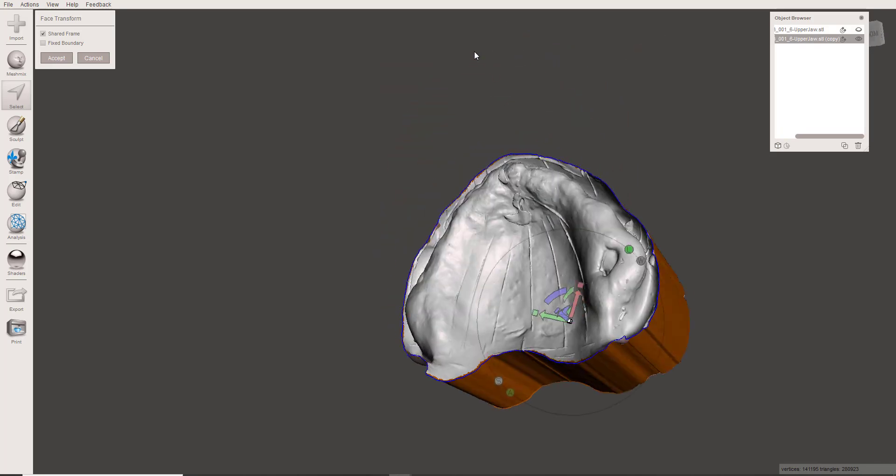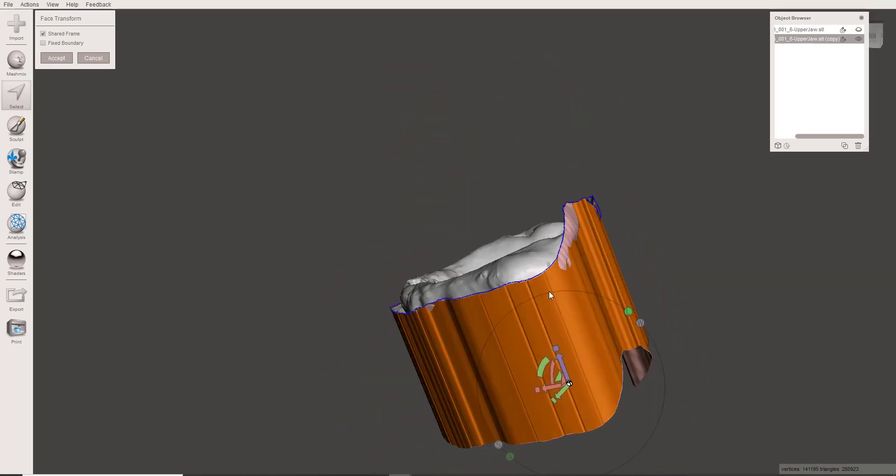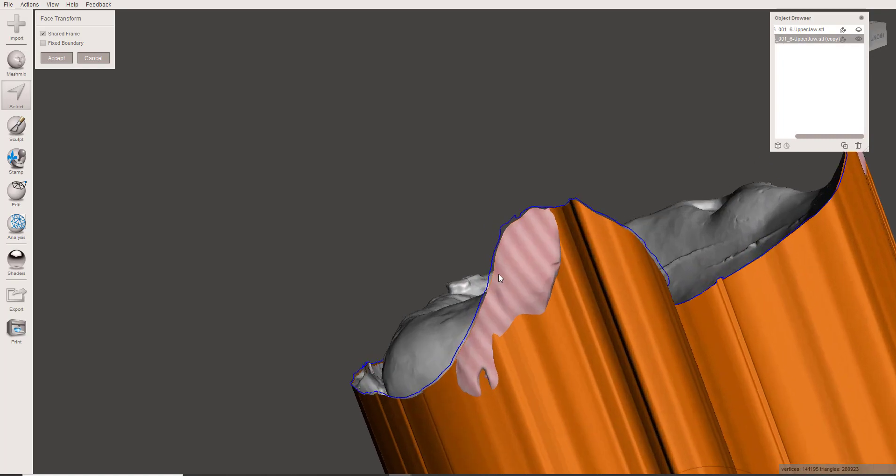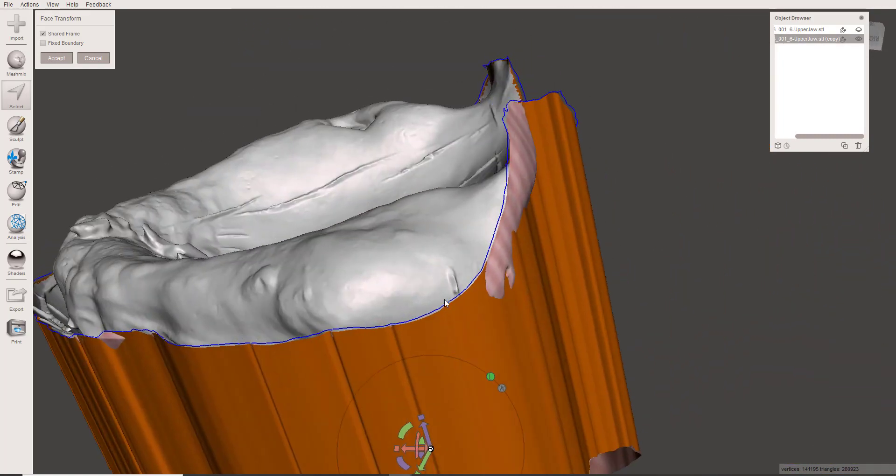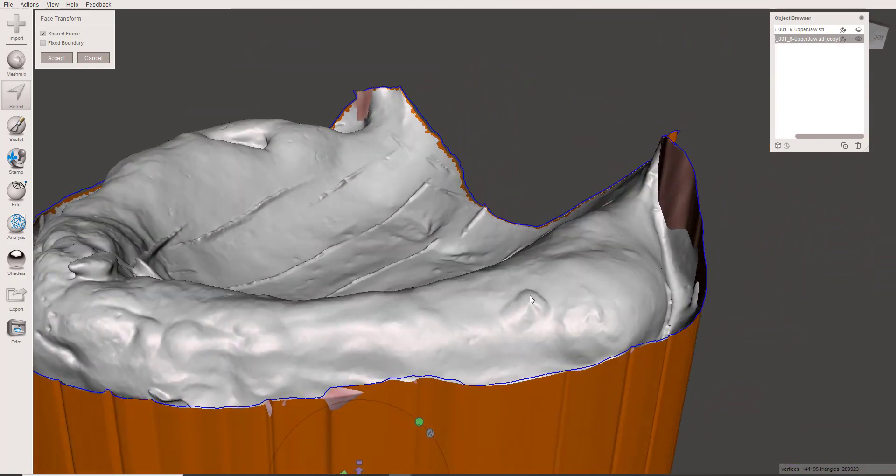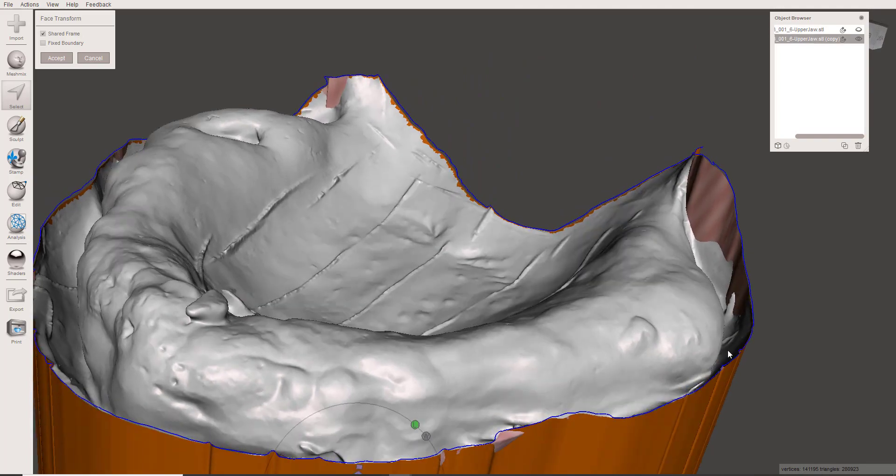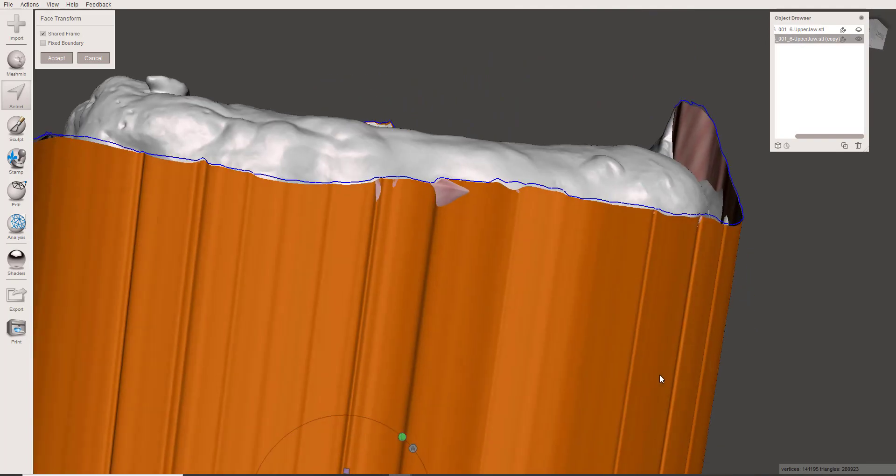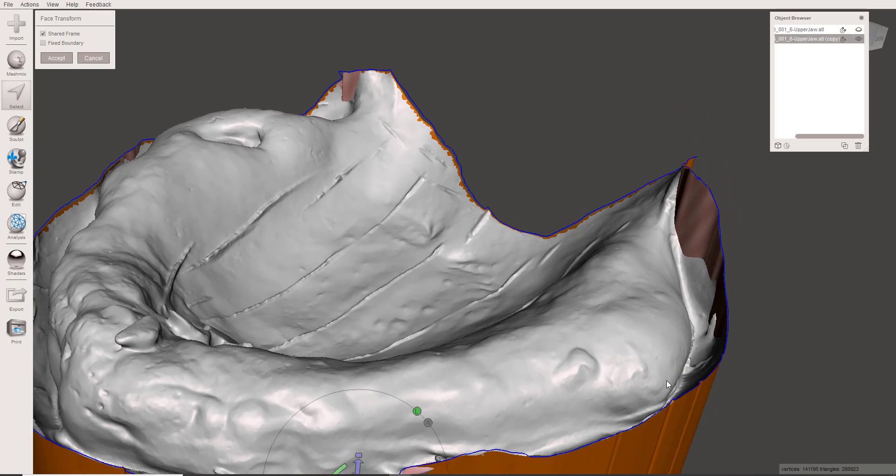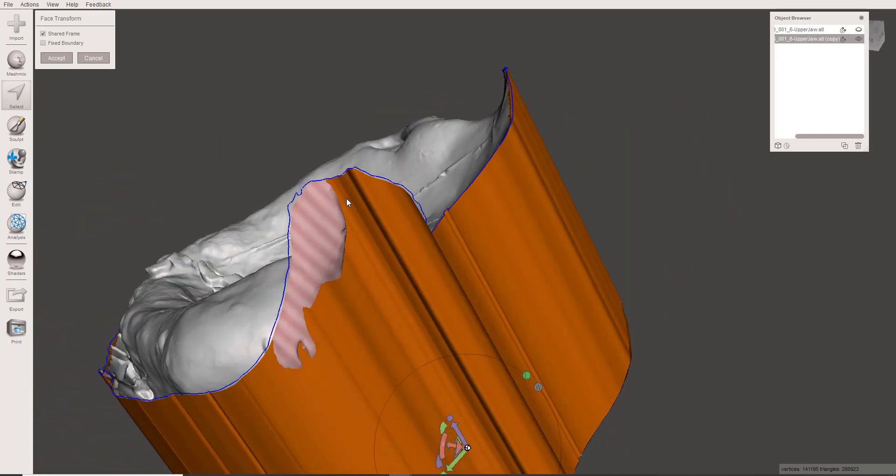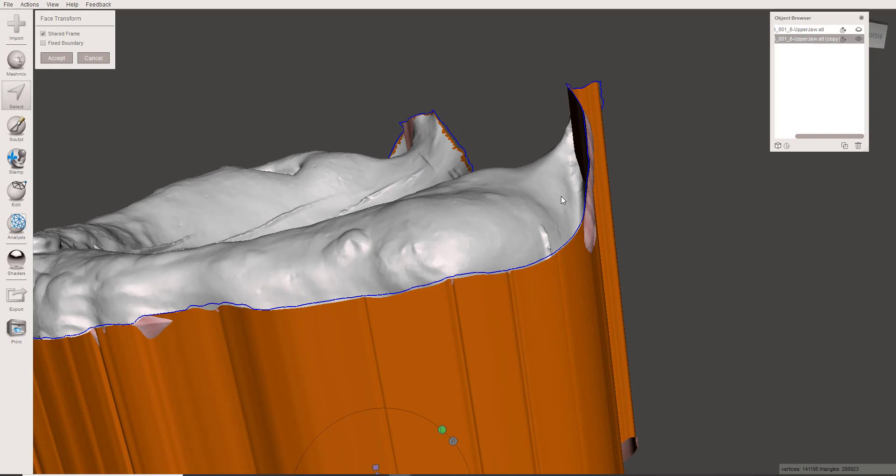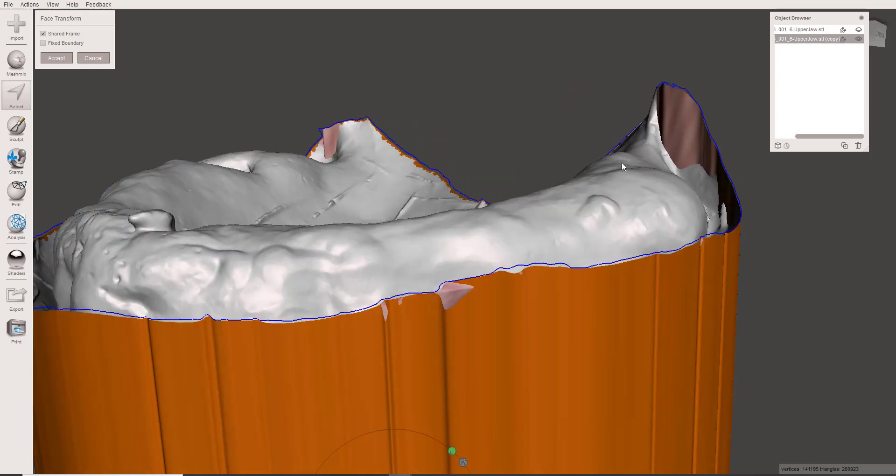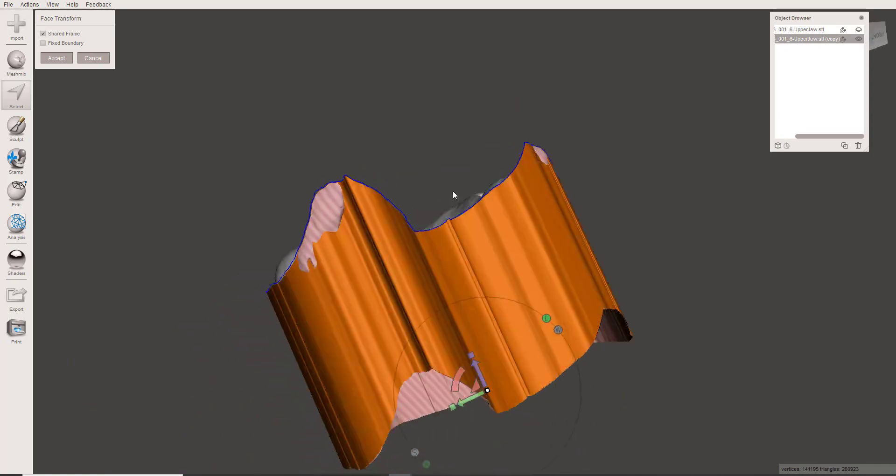The problem with doing that on edentulous stuff is this. Because you're really concerned about capturing the entire boundary or the vestibular extension, you can't just trim the boundary back and get rid of all the little areas that aren't to your liking. So what happens is any area that your model kind of swoops outward and then comes back over itself, when you drag that boundary down, it's going to create a fold in the mesh or a place where the mesh crosses over itself.